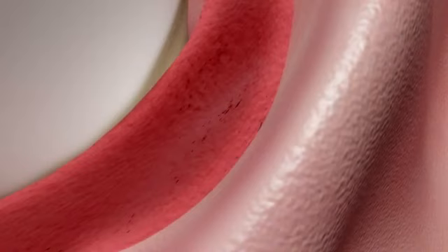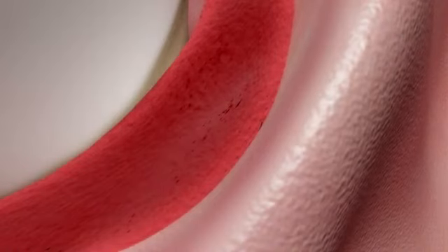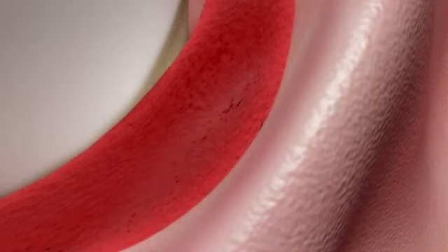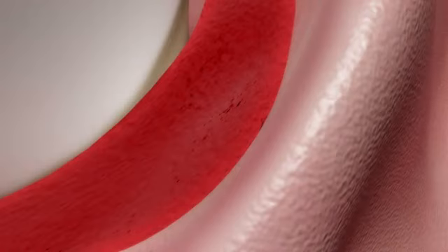Stabilization of the clot is mandatory for proper healing. This is where other competitive periodontal disease treatment protocols fall short. With the collagen matrix, we achieve a firm, stabilized clot.